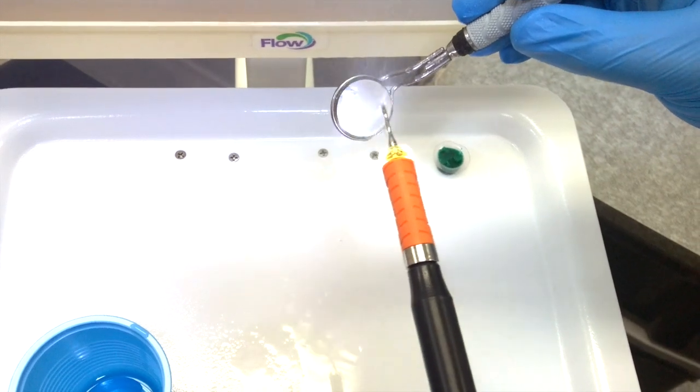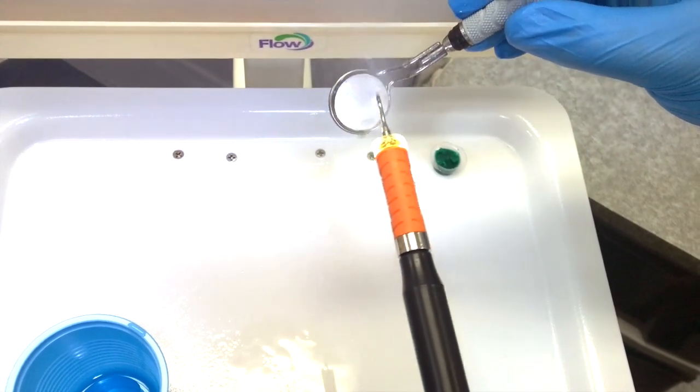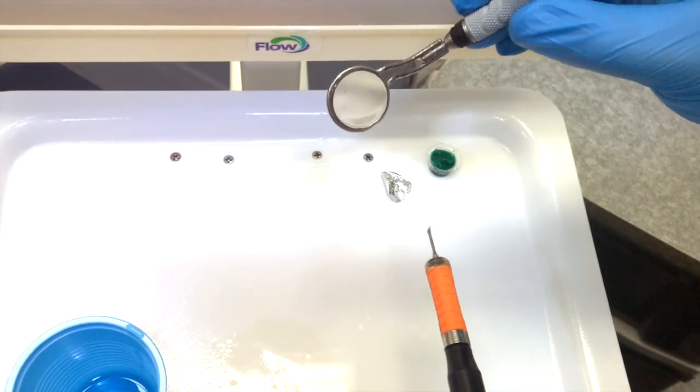But if you notice through the procedure that it starts to get droplet-y again, you just repeat the procedure and it works great.